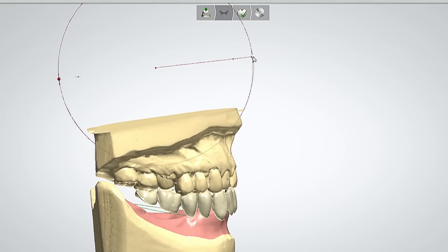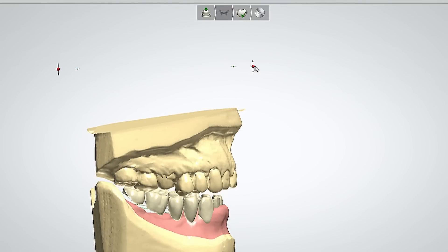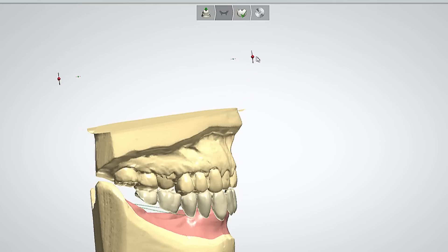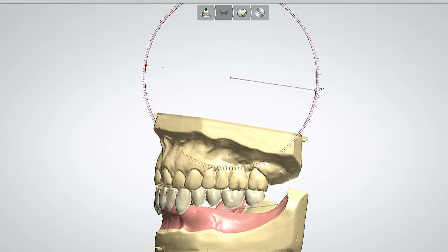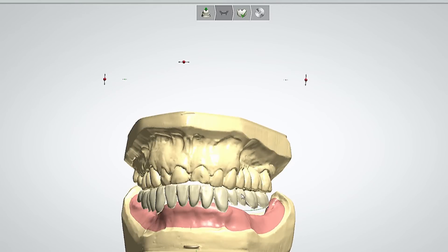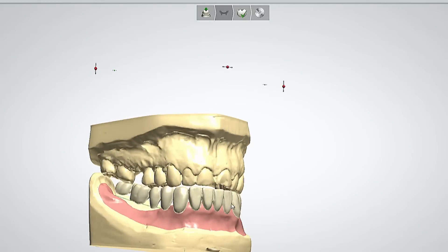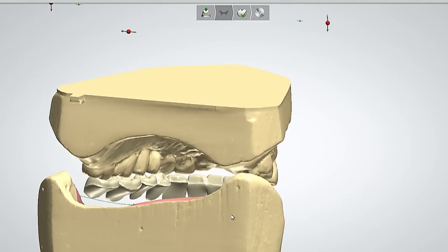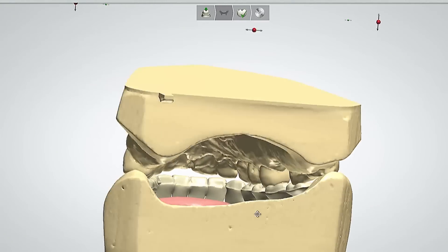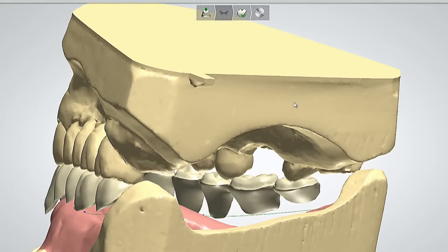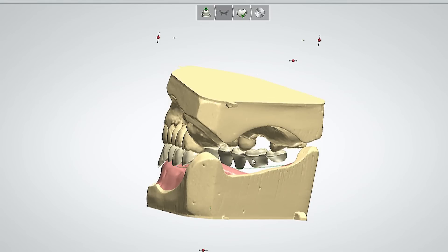The technician can import from a library of teeth and bring into view some of the teeth we want to set. In this case, all the teeth are set together, so the technician has the ability to move them as one unit. She can also go ahead and select the plane of occlusion. There are some minor adjustments that need to be made.